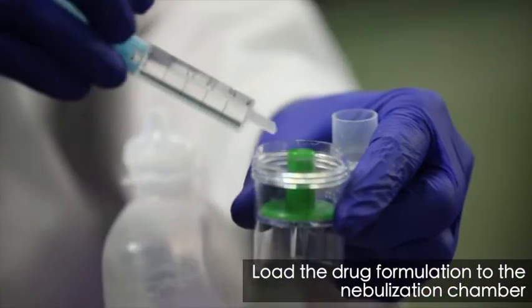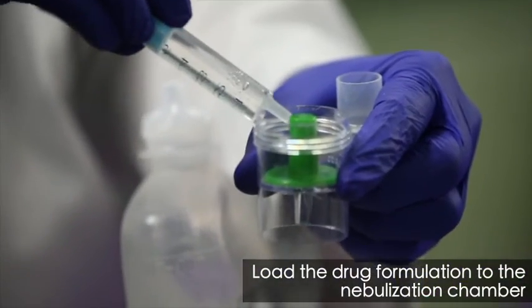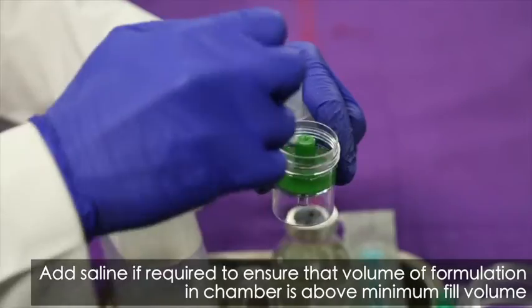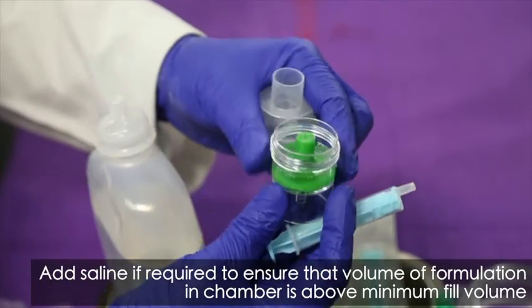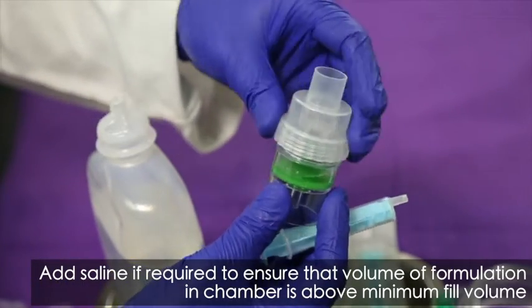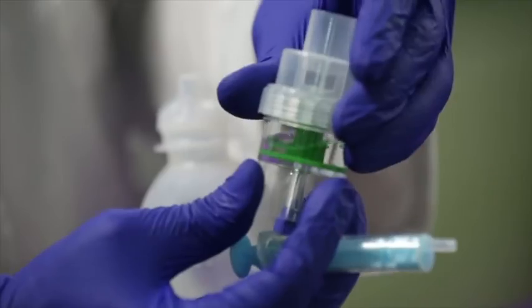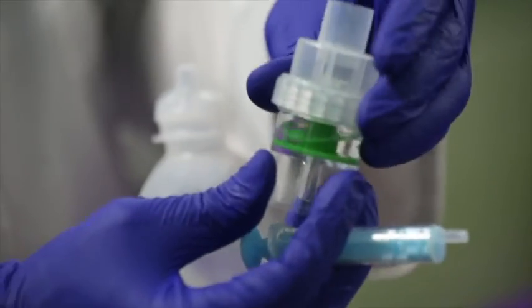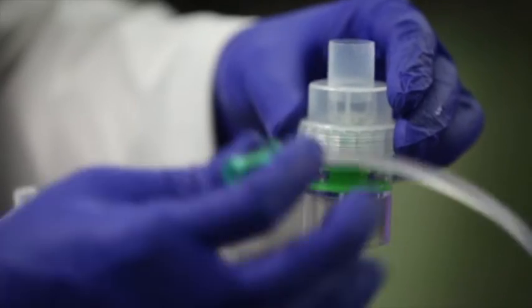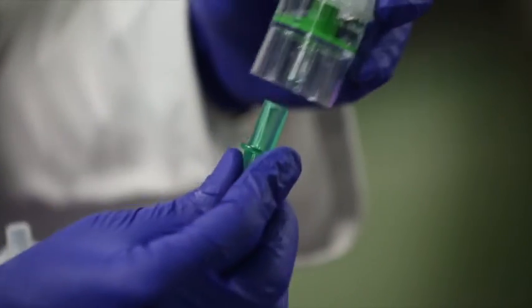Load the drug formulation into the nebulization chamber. Add saline if required to ensure that the volume of formulation in the chamber is above its minimal fill volume, as shown.